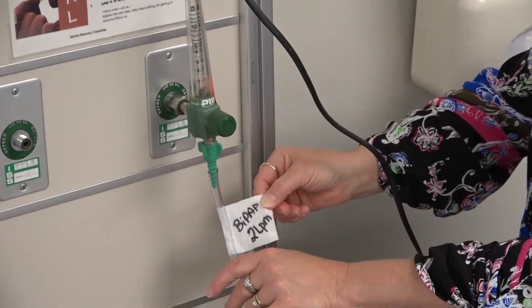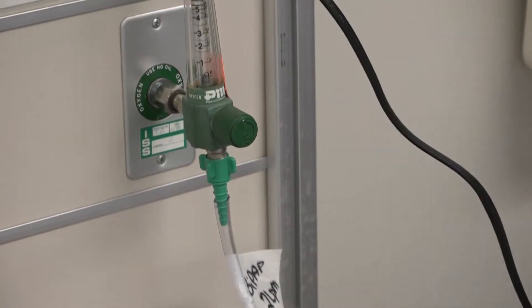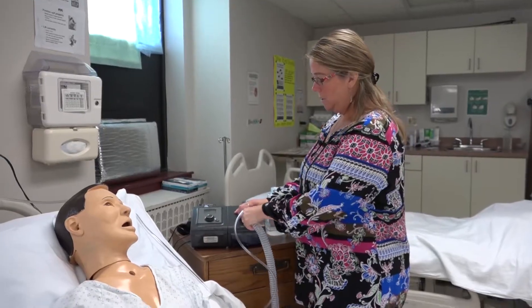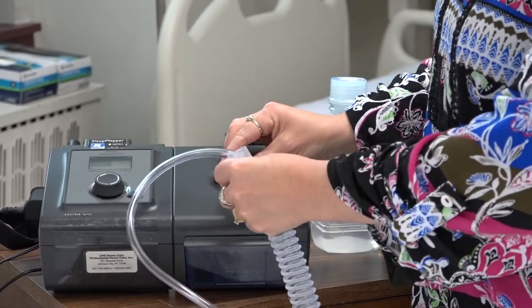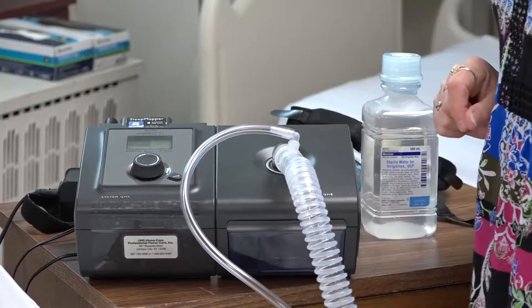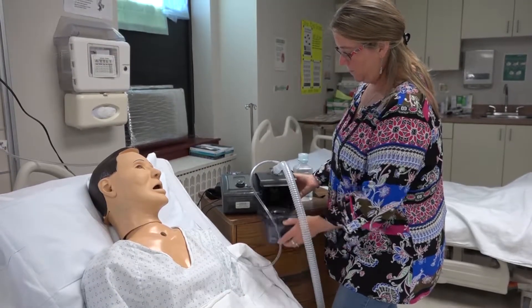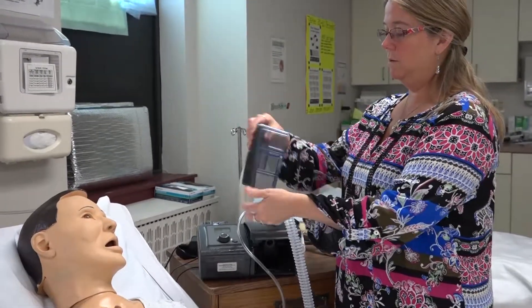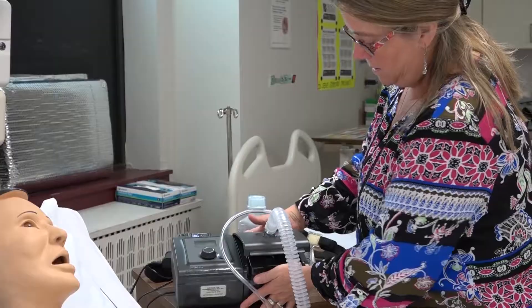The flow is set at 2 liters per minute. We label the tubing as it goes to the flow meter so you know specifically that it is hooked up to the oxygen and not the patient's cannula. For humidity setup, we open the water chamber, pull it out, and fill it with sterile water only to the fill line. Once full, slide it back in and close the top.